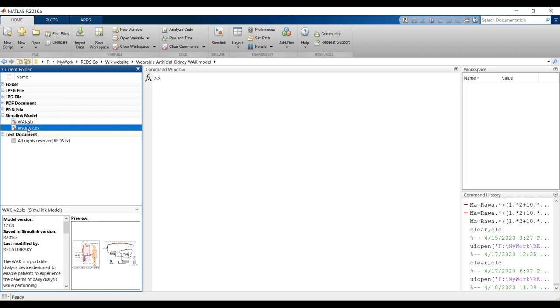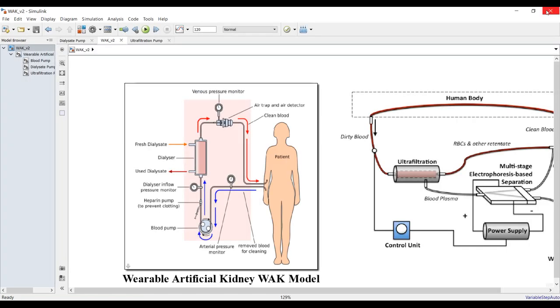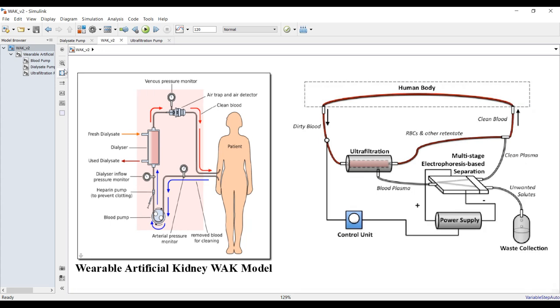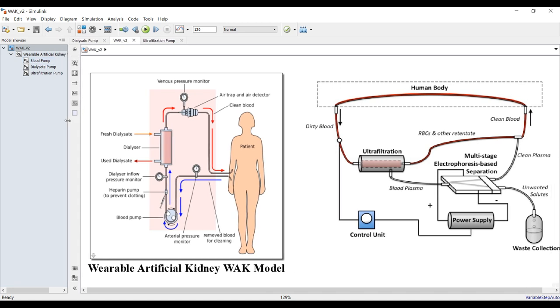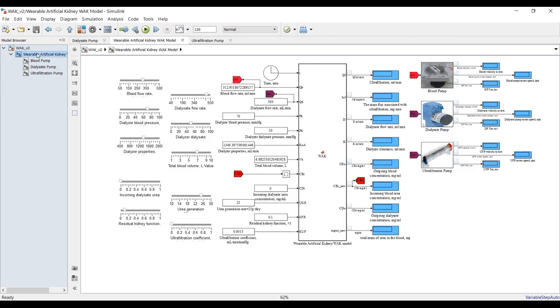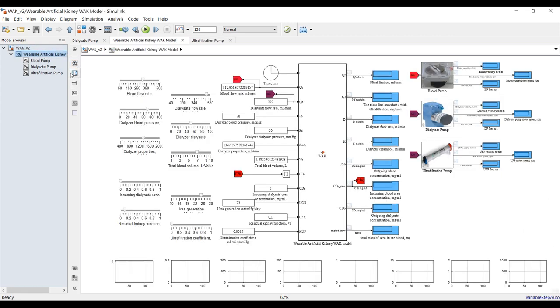This is our main model. Double-clicking — we have shown this before, so there's no need to go into full detail. We would like to announce that we added three new main blocks: blood pump, dialysis pump, and ultrafiltration. Let's go inside.